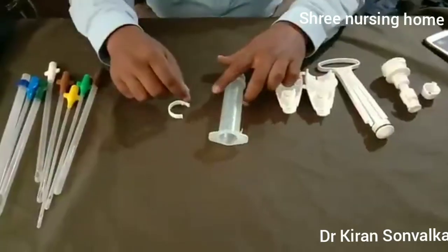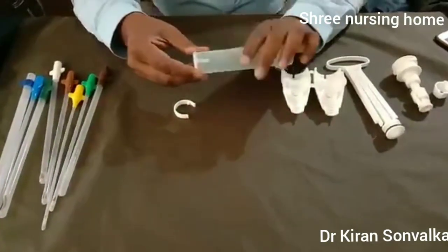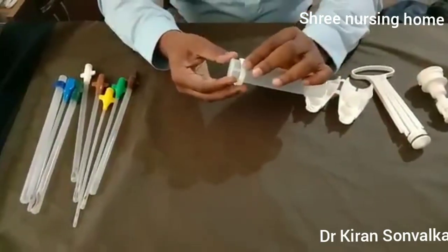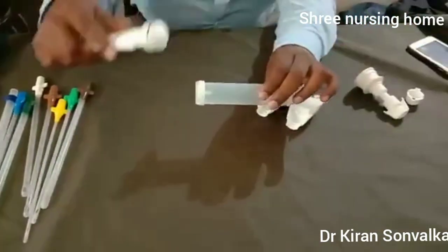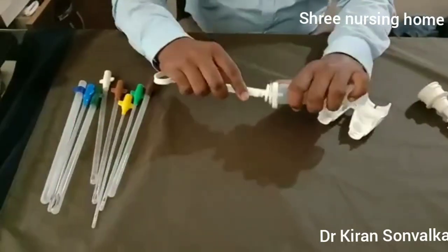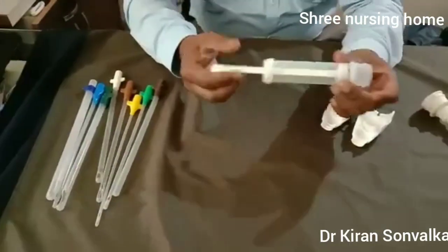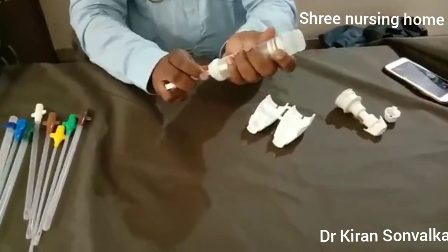For assembling the cylinder or barrel: there is a clip on the upper side of the barrel. You have to fix the collar into the clip. Then you have to put the plunger inside. Then you have to lock the collar — there are two holes; you fix the collar in that hole so the plunger will not come out of the syringe.